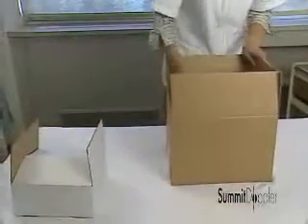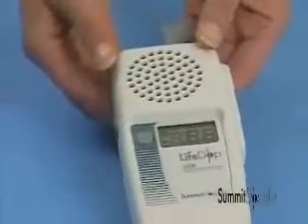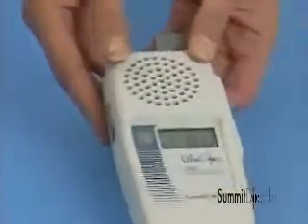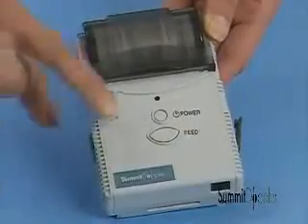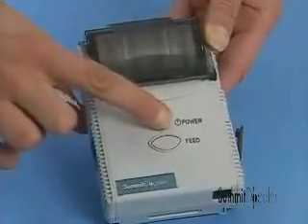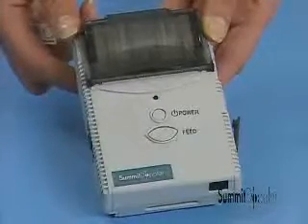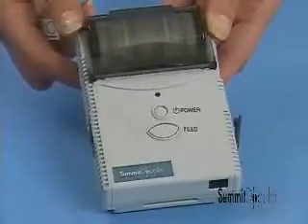Setting up the system is simple. Remove the Doppler and the printer from their packaging. Plug the coiled cable into both the probe and the Doppler main unit. Press the button to turn the Doppler on and off, and use the slider to adjust the audio volume. The LifeDop 250 ABI printer is supplied with paper already loaded. To turn on the printer, press and hold the printer on-off button for 3 seconds. The printer LED will flash green when the power is on.